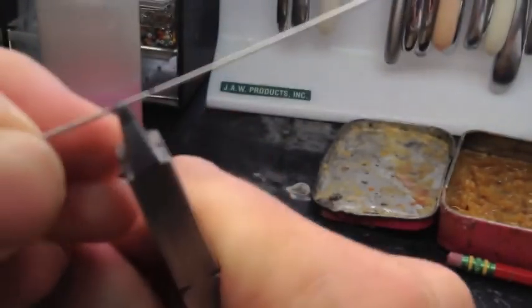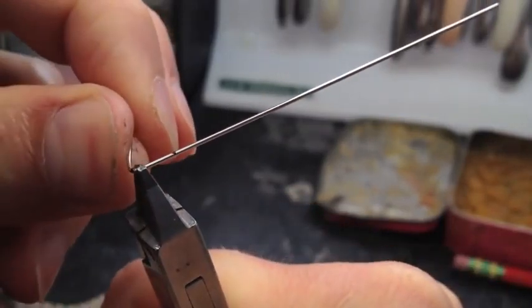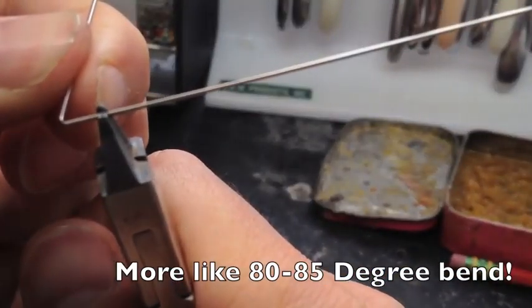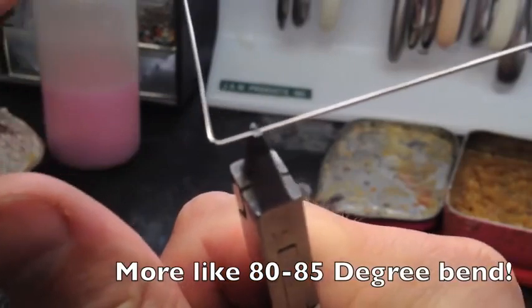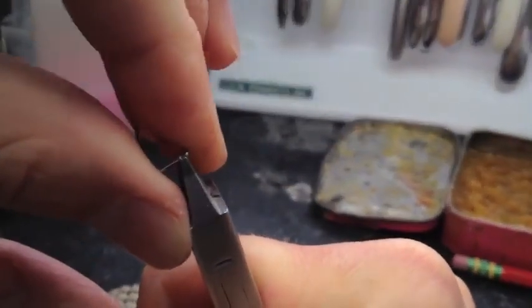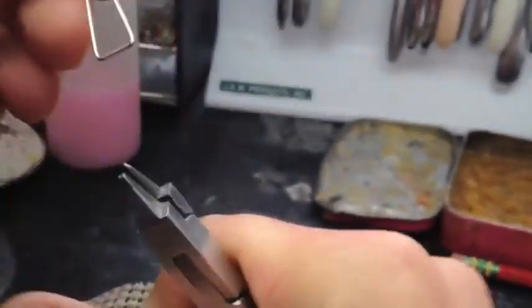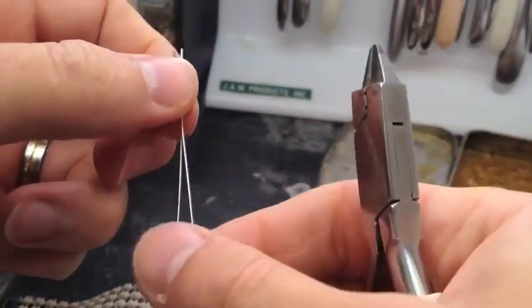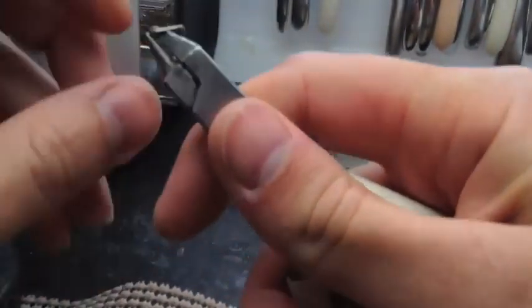You're going to bend these to where they form kind of a triangle. It's kind of hard to bend with this camera right at chest level, but that was the best way to get the best shot. There's my little triangle — make sure they cross at the top because that helps with the final formation.